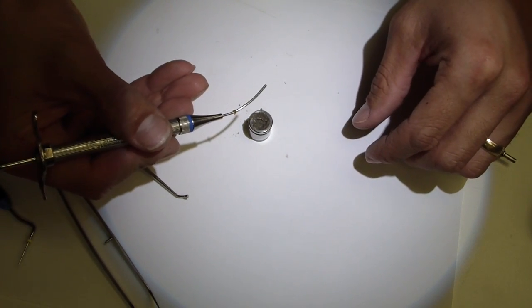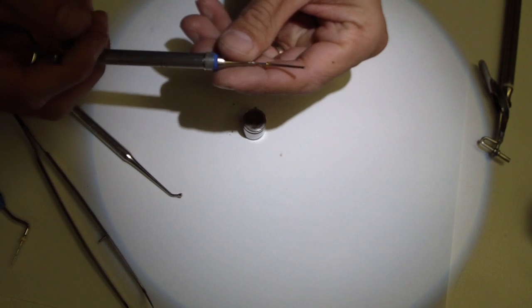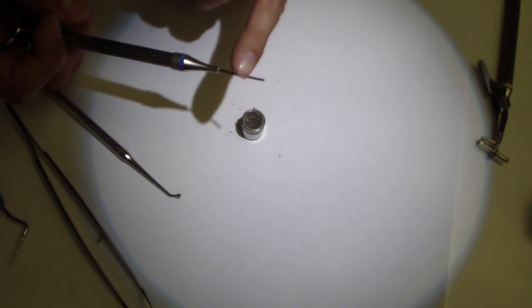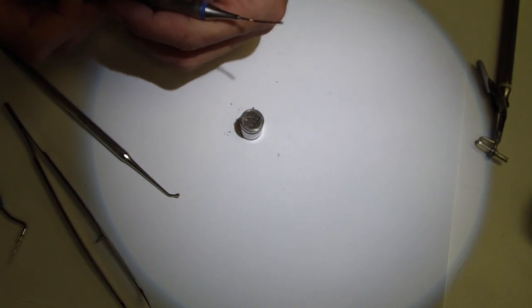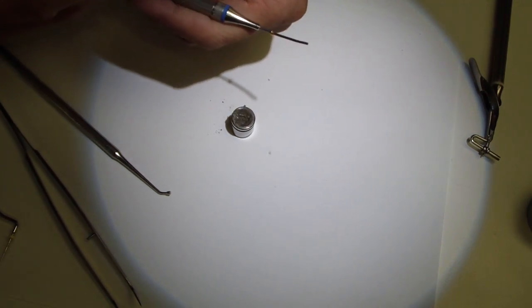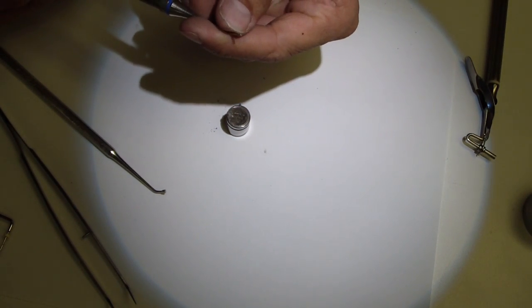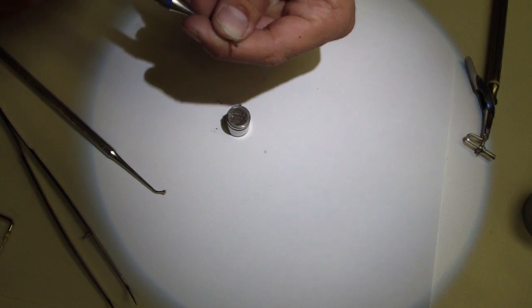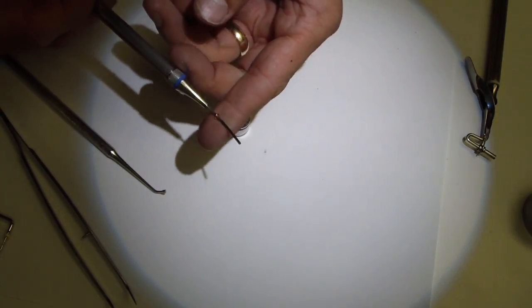I'm going to take my MAP carrier. Two things I'm going to point out. When you're using it, make sure this has been cleaned well. Make sure that when you press it all the way down, so I've extruded the material, that I can see the end of the piston. And when you pull back, you don't see it.